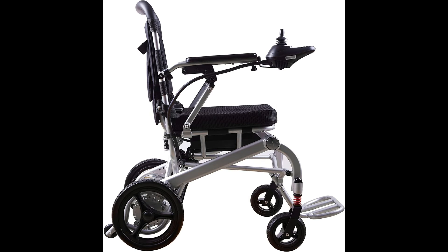The motors are powerful, energy-saving, and durable. Together with the high-quality rubber tires, they provide better traction, making it easier to navigate steeper slopes.